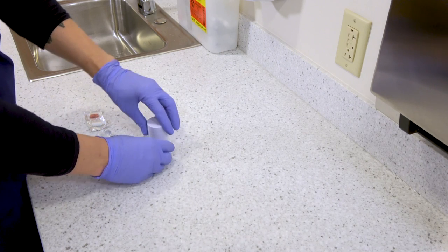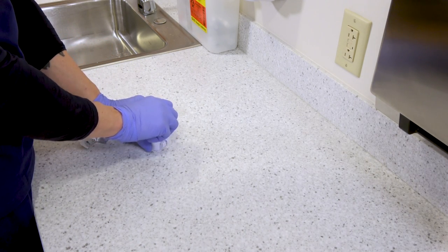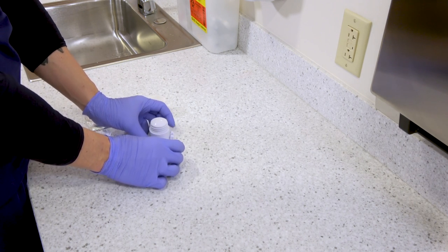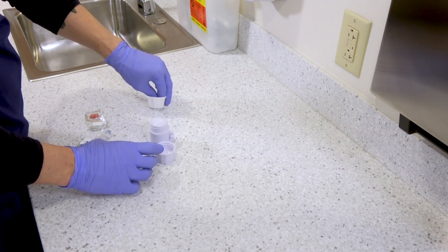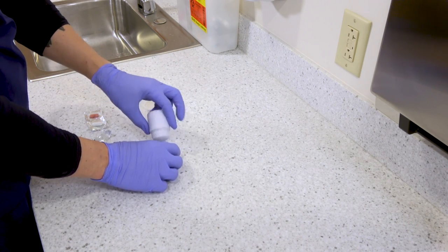If we need to crush pills, we're going to use the crushing chamber. Anytime you're crushing pills, do this one medication at a time. Don't ever mix multiple meds in the crusher. Open the pill crusher, remove the pill from its packaging, and put the pill in the crushing chamber.